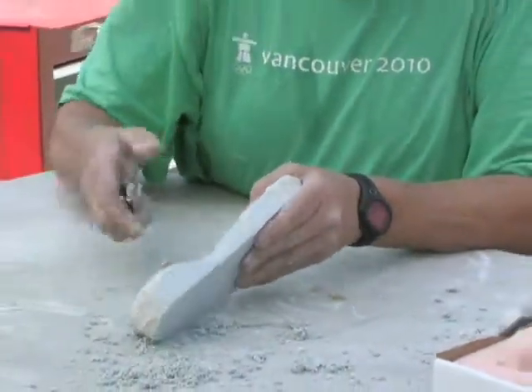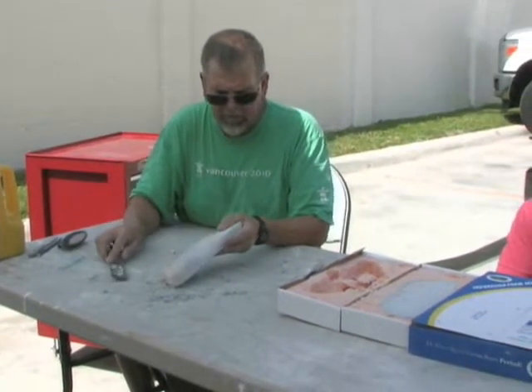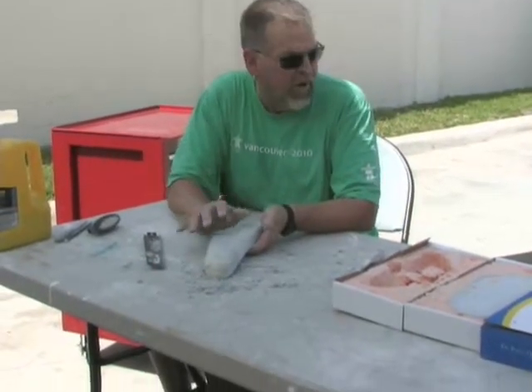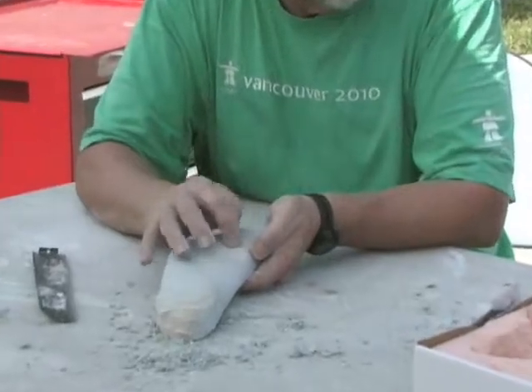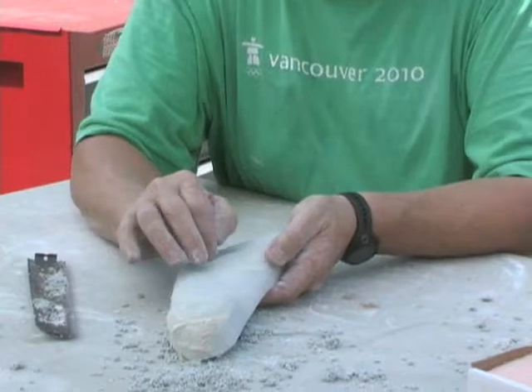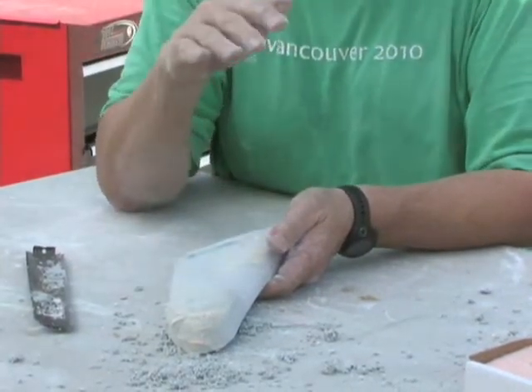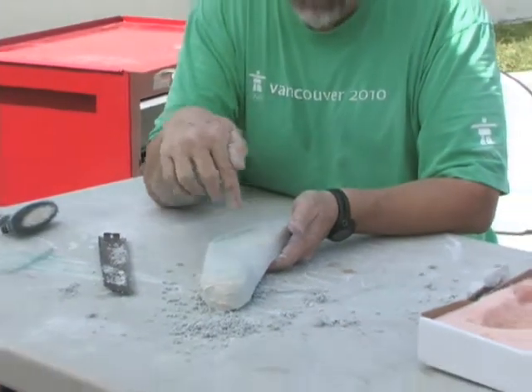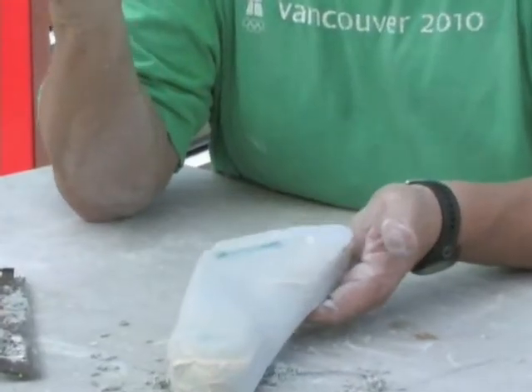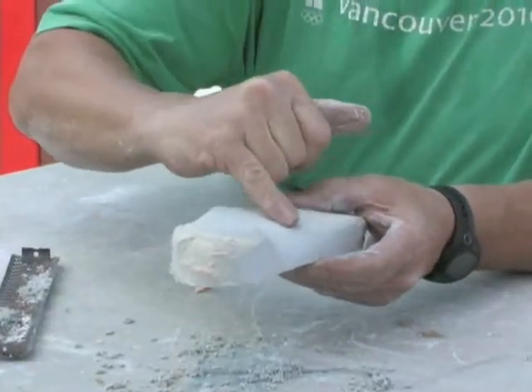Then I come up here by your first metatarsal. On the side of the first met everything's okay, but there are three areas that are totally off base. You cannot touch the first and you cannot touch the fifth with the file — those you cannot compromise, because that's something we're using from start to finish in making the orthotic. If you touch the first and fifth with the file, you will distort it and then everything is thrown off.